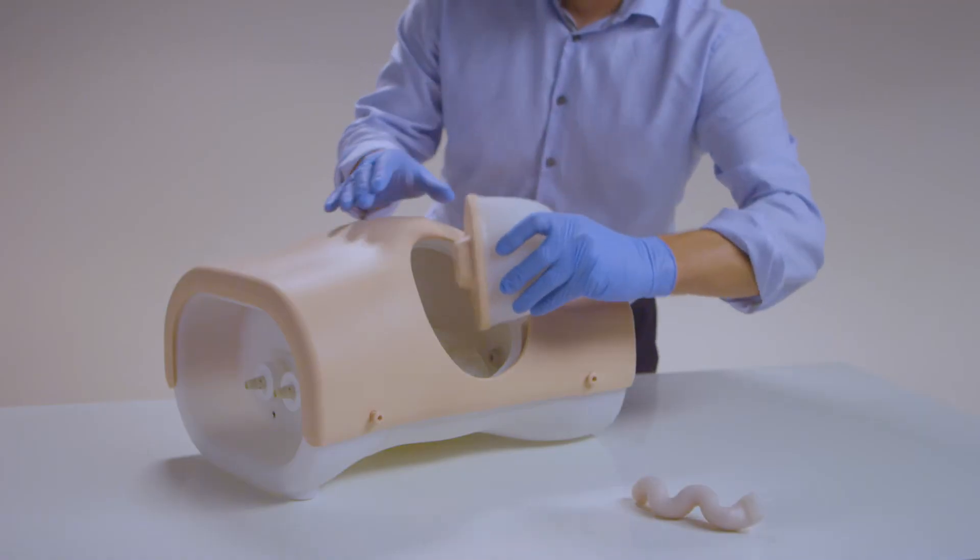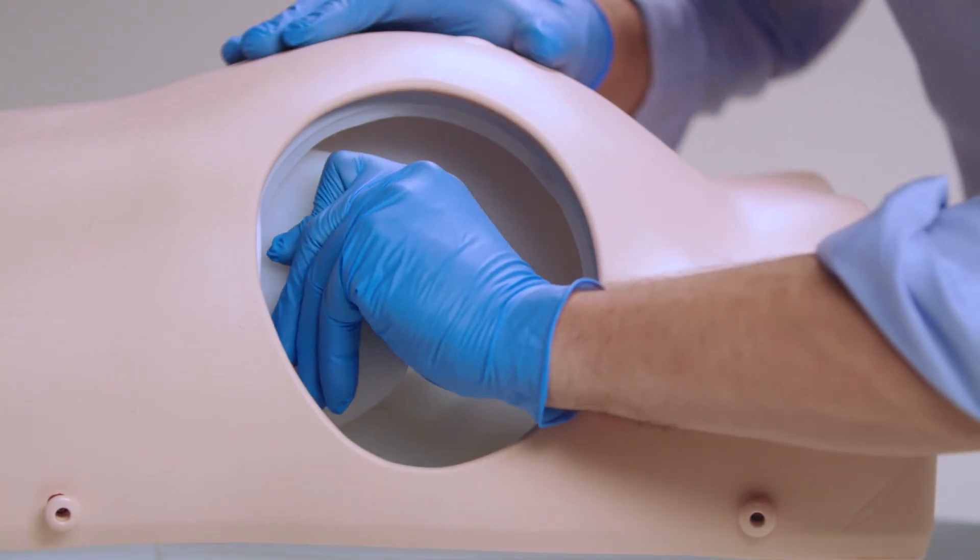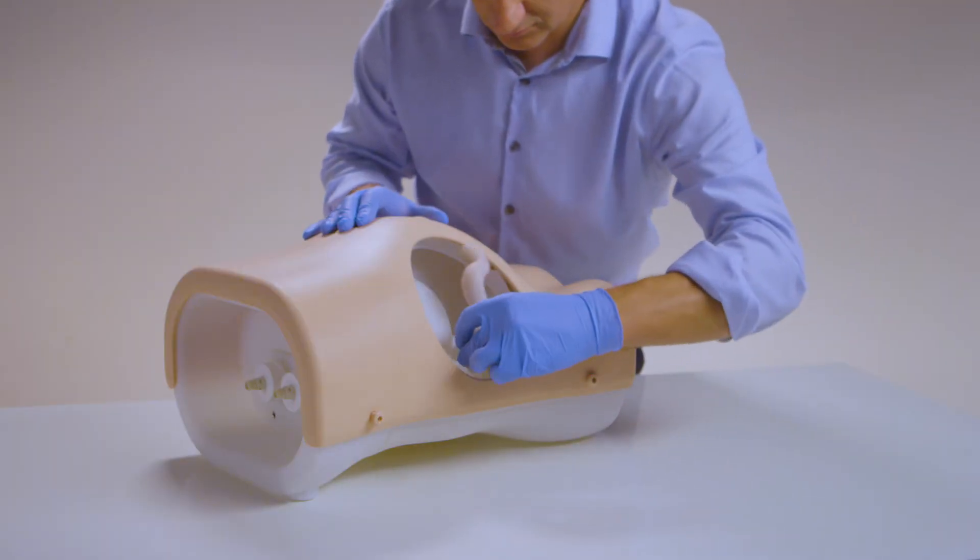The bowel, liver, spleen and floating bowel can be placed to meet training needs.